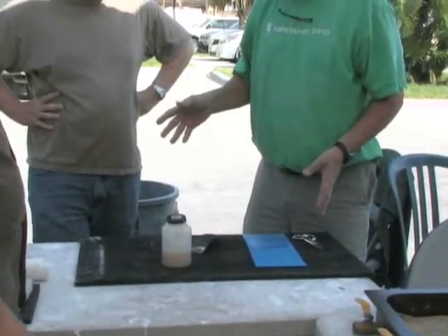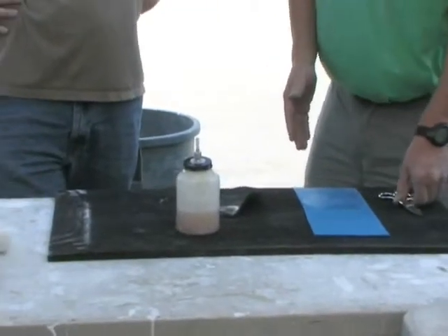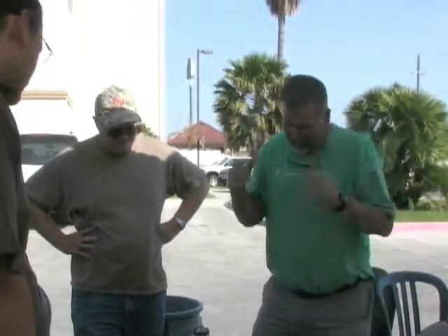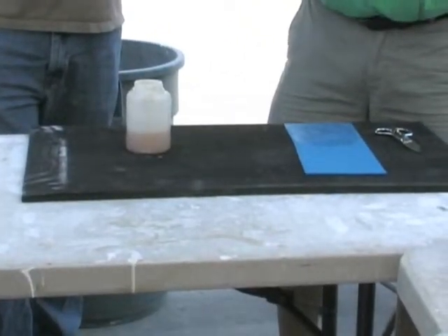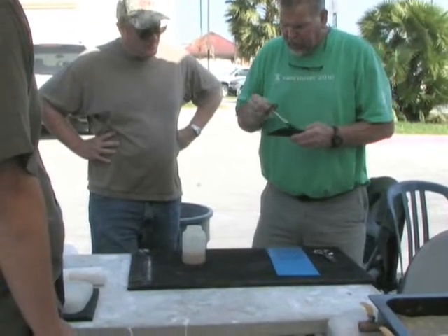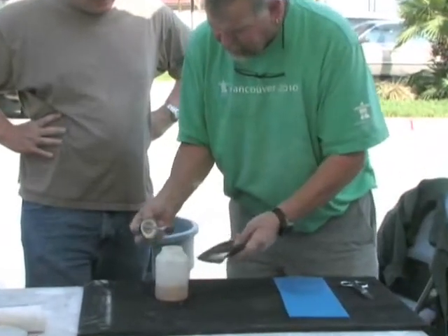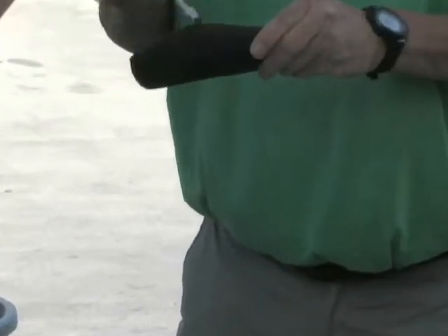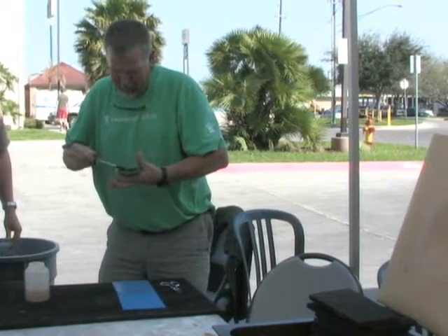Murphy's Law: if I omitted glue in a spot trying to save a little bit, that's right where I'm going to need it. When you're brushing glue on your orthotic, start in the center and brush your glue out — don't drag it across the end, you'll get a lot of glue line on the sides. Brush out. I come around the edge.